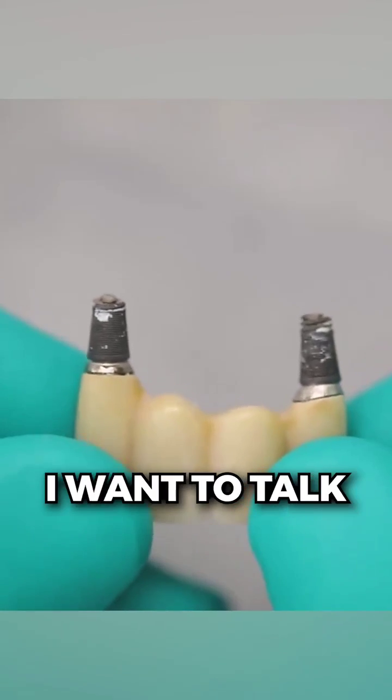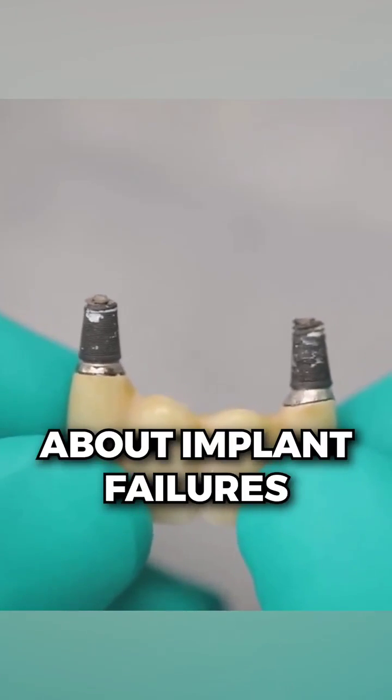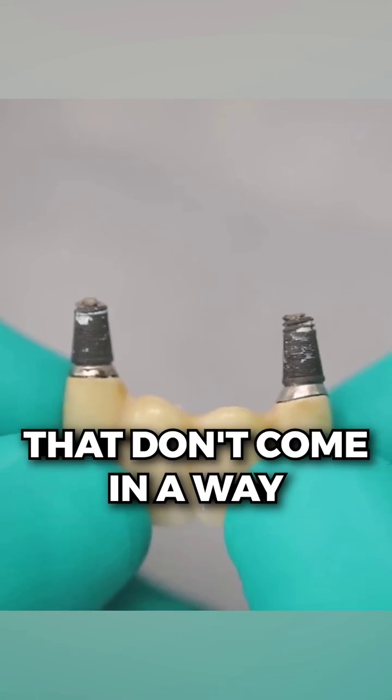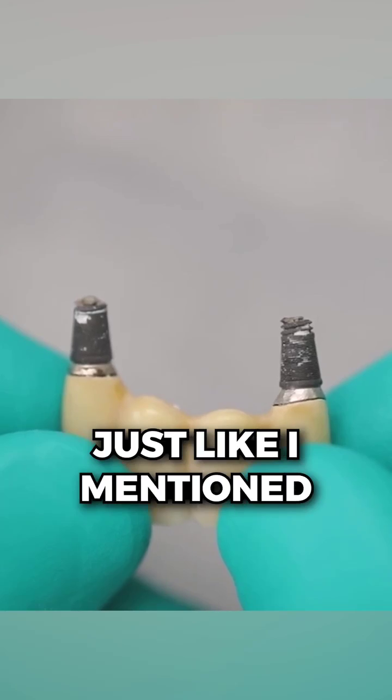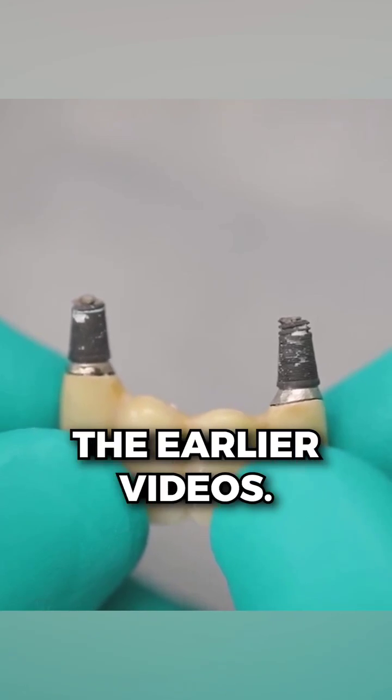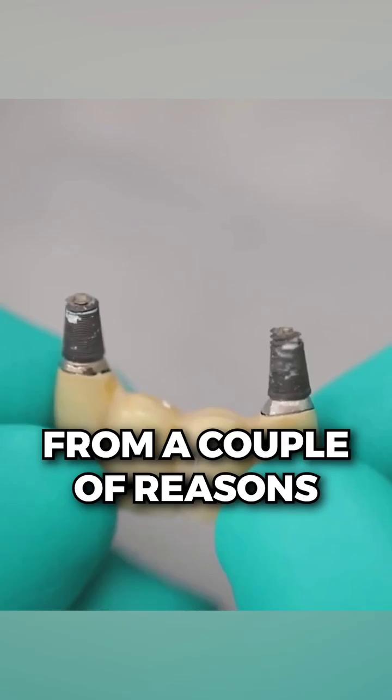All right guys, what I want to do now is talk about implant failures that don't come in a way that we would normally anticipate. This is a combination, multifactorial failure, just like I mentioned in some of the earlier videos, and this one comes from a couple of reasons.